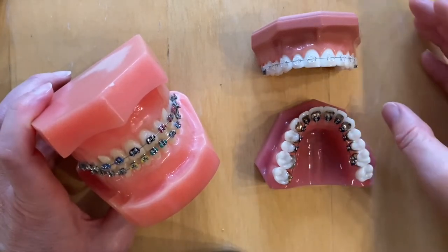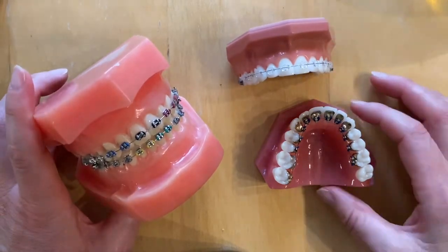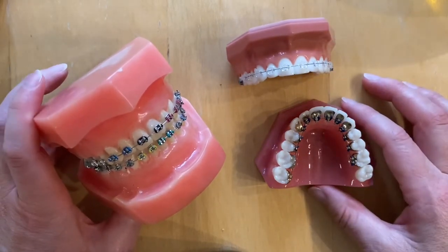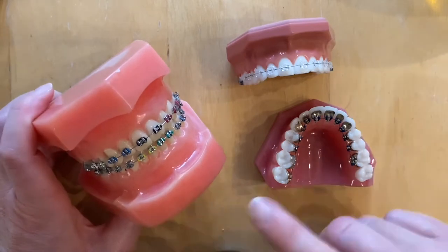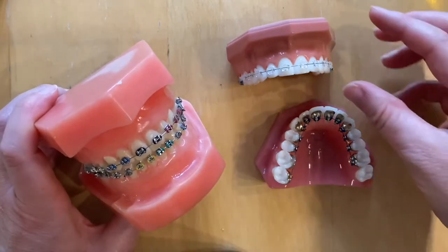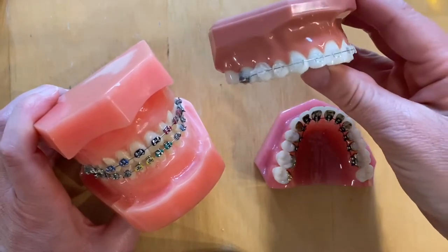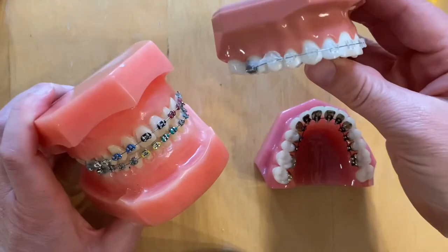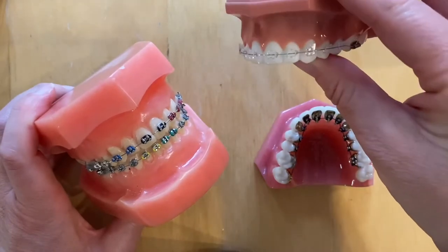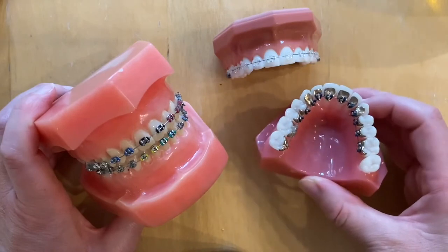If you've just had fixed braces fitted, you need to know how to look after them to get the most out of your treatment and to reduce the risks to your oral health. This might apply to regular fixed braces with metal brackets, ceramic brackets which are the same as metal but with ceramic material, or lingual braces which are fitted to the back of the teeth.